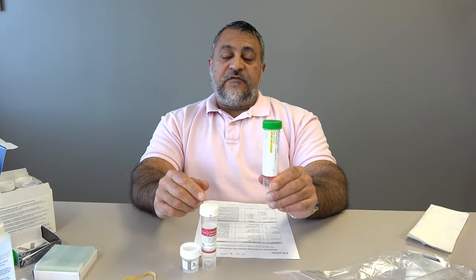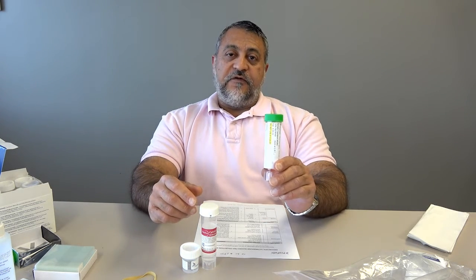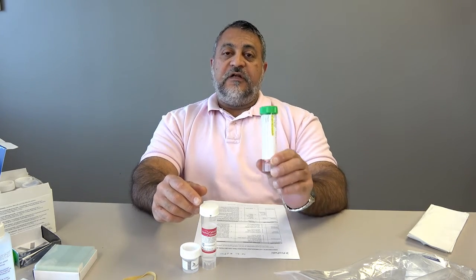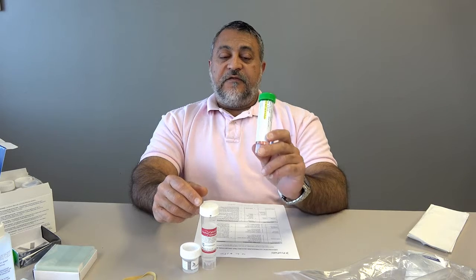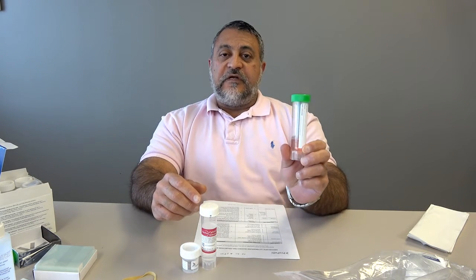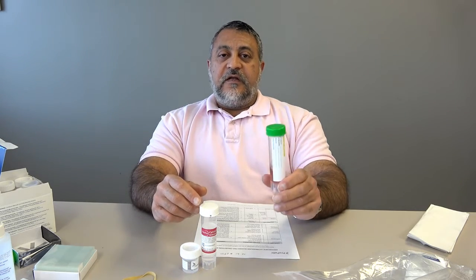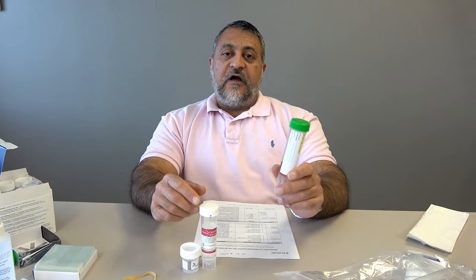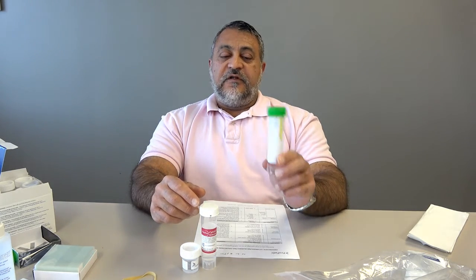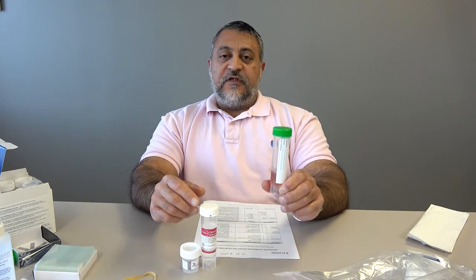The key here is two things. One, enough cells. You need 1 million cells to be able to do flow cytometry. So you're going to need to do 1 or 2 passes just for here to get yourself a good flow sample. And the second part of it is you need to get this to our lab quickly, because this is basically nutrition. It's nutrition for cells. It keeps them alive, but it doesn't keep them alive for very long. It keeps them alive for maybe a day or day and a half. So you need to get this to our lab so we can run the flow, and you need to order the flow if that's something you want.